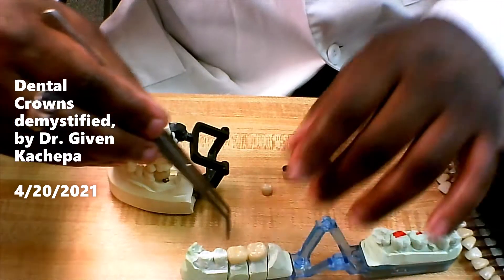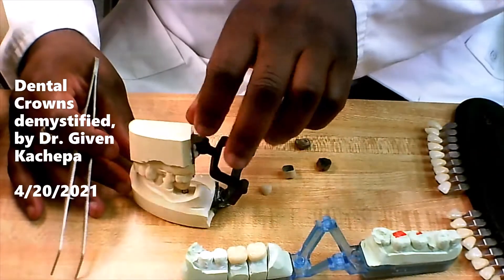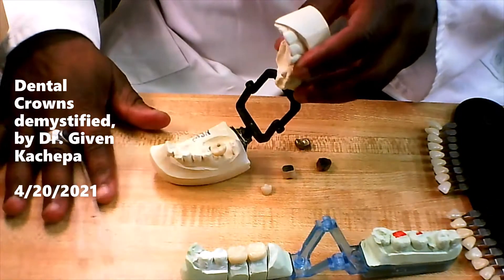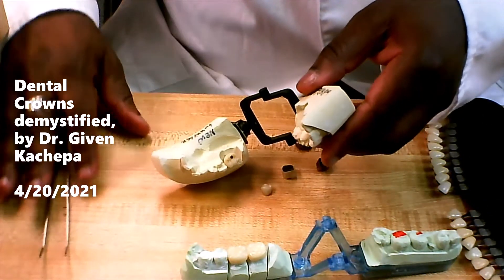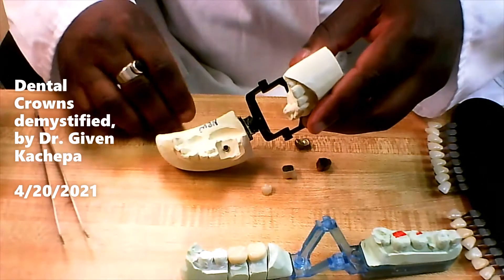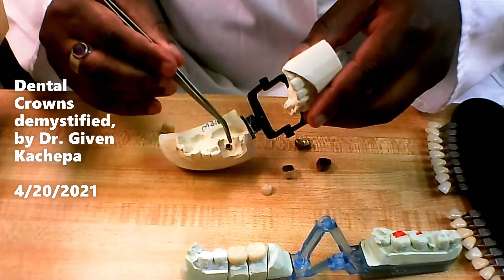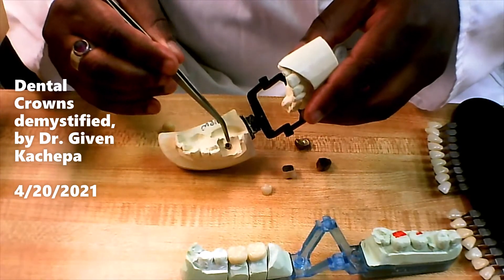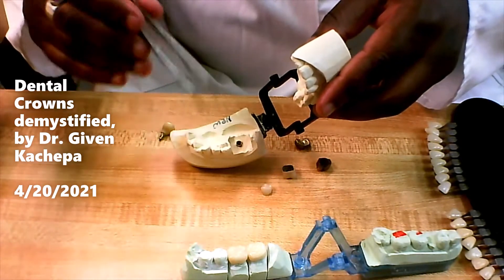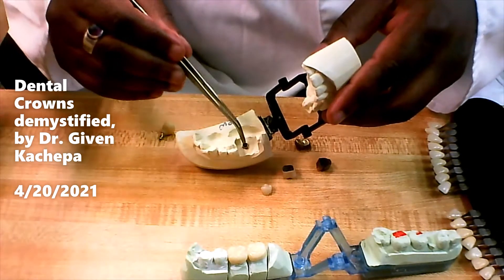Now these are just regular crowns. You can also have a crown on top of an implant. Here's a crown that was made on top of an implant — I'm going to take this crown out. The bottom part you're seeing here is the implant. There are a lot of details to how we make this, and I'm not going to go into all of that detail in this video.